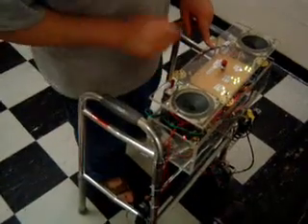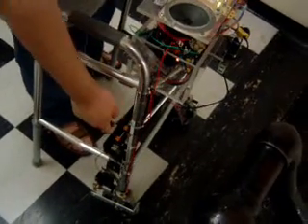Notice, I'm going to restart the system — it begins the program as normal. And I'm unlocking the brakes. Even if I have the brakes unlocked and I push the emergency button, it locks the brakes.